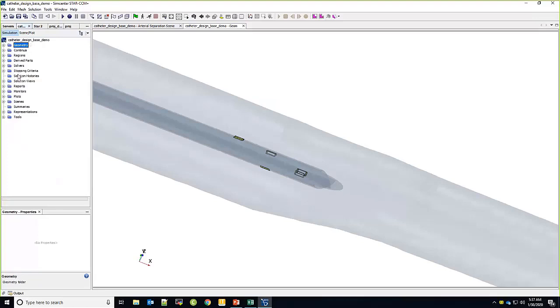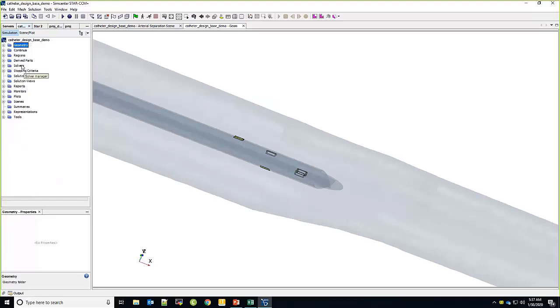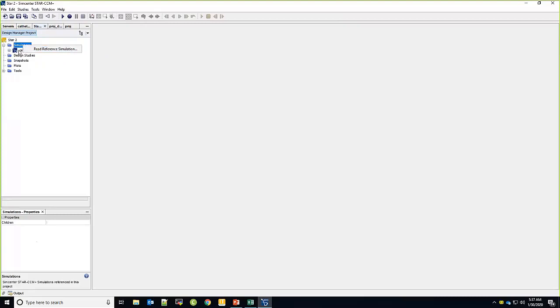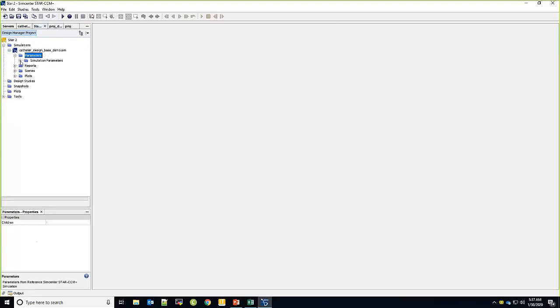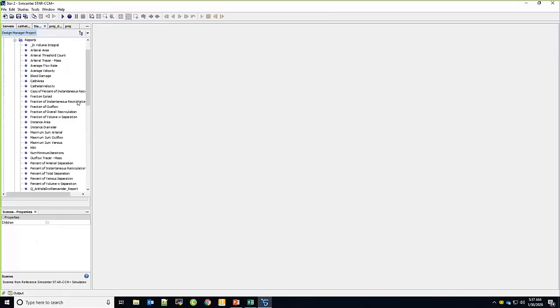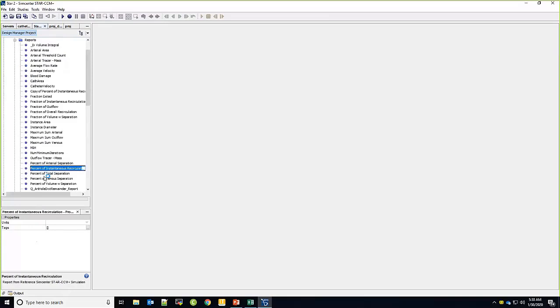From there we go into Design Manager, which is an automation tool within the SimCenter Star CCM Plus portfolio. You read in a reference simulation and get a compressed list of all characteristics relevant to a design exploration study — whether optimization or sensitivity. Here I see the full list of parameters. I also have all the post-processing: reports for the modified index of hemolysis, recirculation, separation, and any other values I'm tracking, as well as the plots and scenes I want to look at.